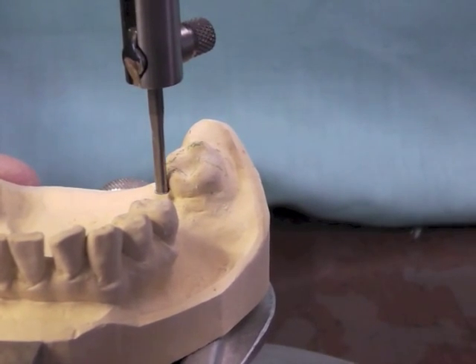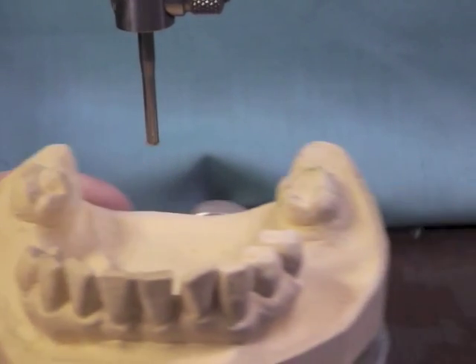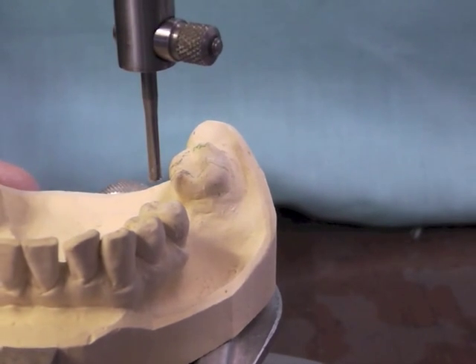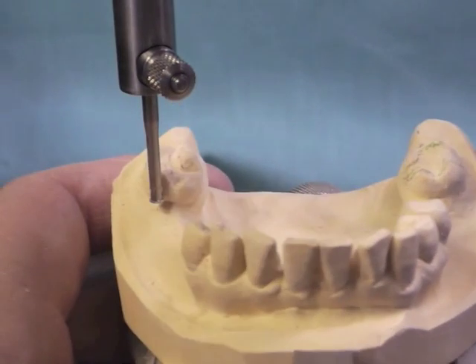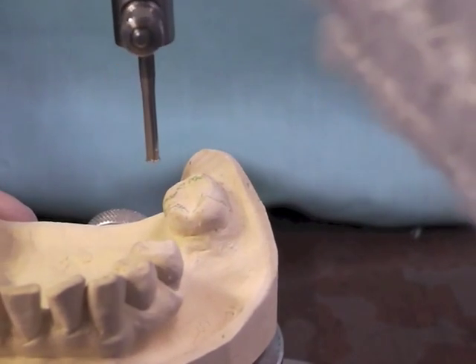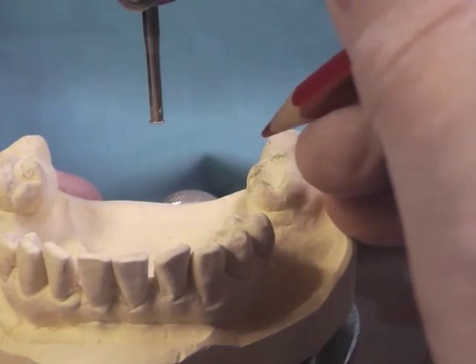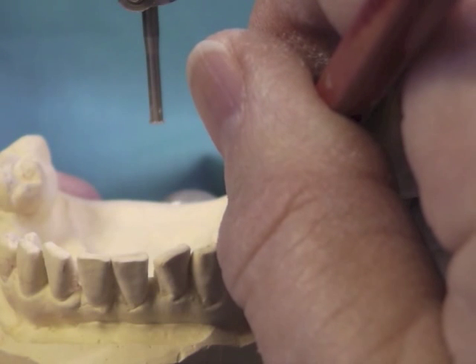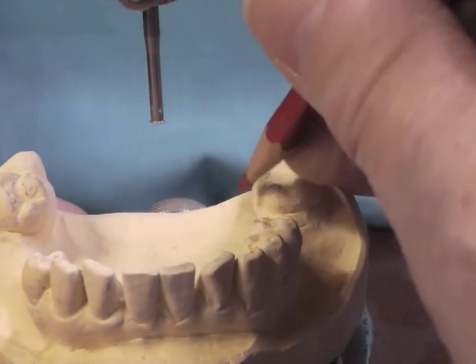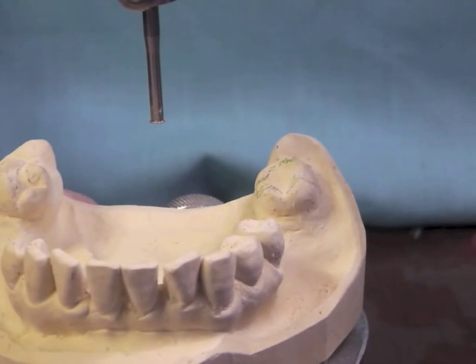So we're going to have lingual, lingual. Now, we don't have the undercuts on the distal because of the way those teeth lean to the buccal, so we don't have much in the way of undercuts back there. So we're going to have to do something called a ring clasp, where we bring our retentive area to the mesial buccal or the mesial lingual. Yet we have to have a rest next to our edentulous area, and that clasp would actually come around and grab the mesial facial or it could go around and grab the mesial lingual. So it will definitely be a ring clasp.